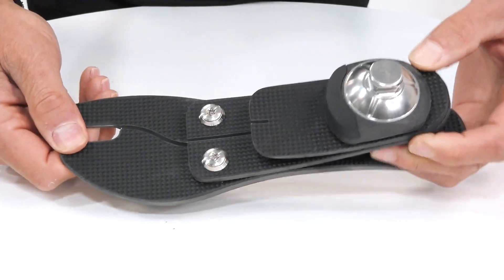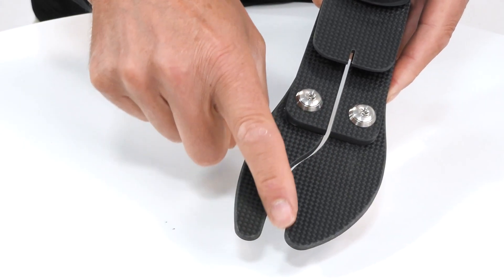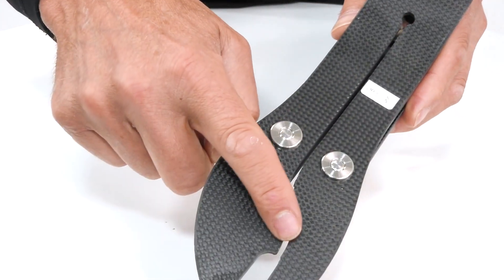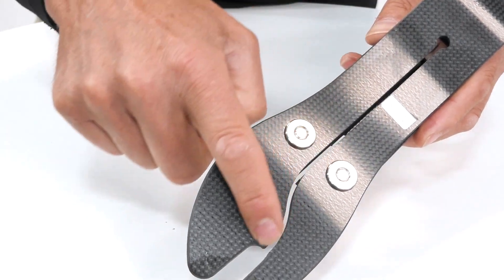We can also see that the blades are handed left and right. We have this sandal toe feature that extends into a split toe, which gives good ground compliance options during walking on uneven or rough terrain.